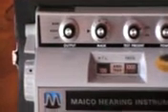One other thing you may have on your audiometer — I don't have it on this one — is the ability to choose between a pulsed tone, a warbled tone, or just a steady beep. I prefer the pulse; it's just more noticeable for the patient. I use that for my kids all the way up to adults. You can use either the steady tone or that beeping tone, but the pulse is what I prefer.